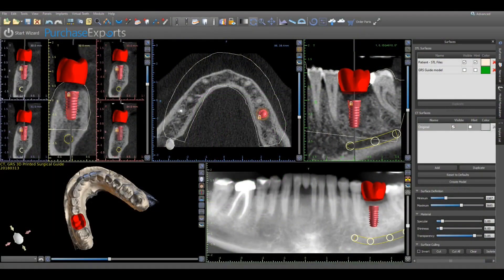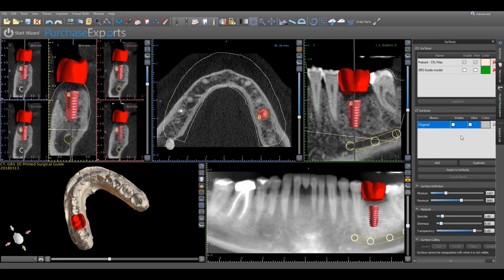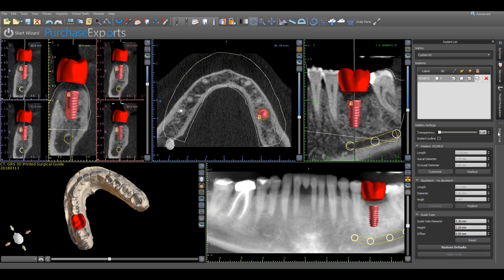Now that all the parameters surrounding virtual implant placement have been established, it's time to design a surgical guide to be 3D printed. Begin by confirming that Blue Sky Plan is set in advanced mode, the uploaded model used to design the case is visible under the STL surface heading, and that the visibility has been turned off for the original scan under CT surfaces.